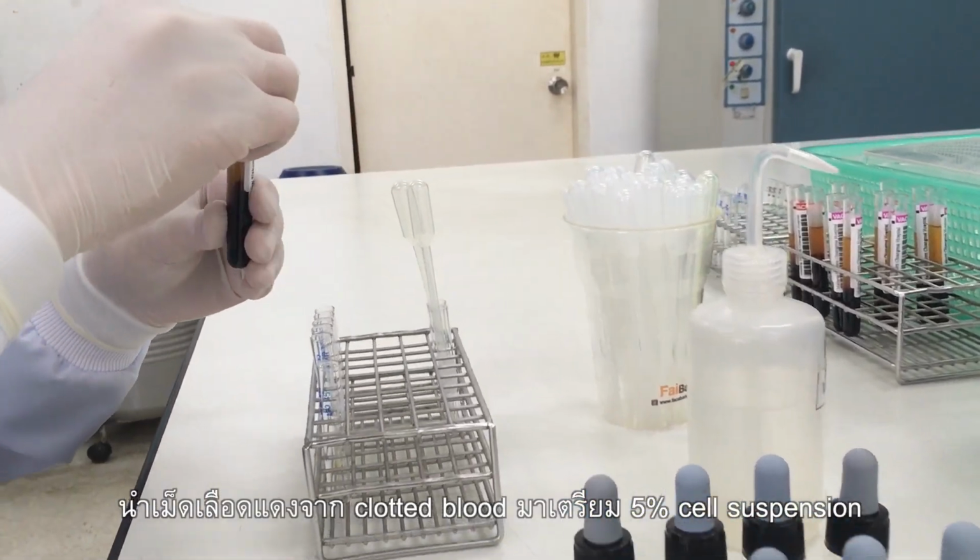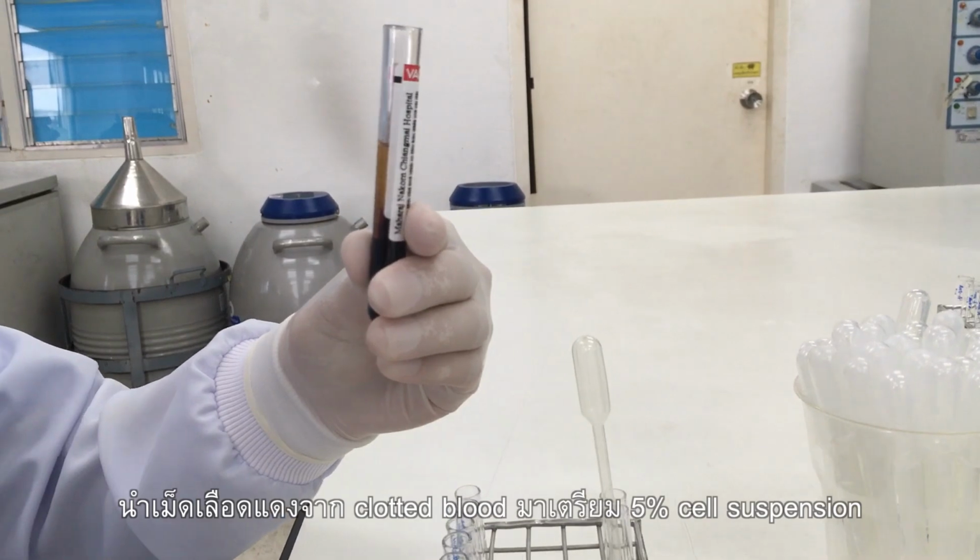Prepare 5% cell suspension from clotted or whole blood sample.